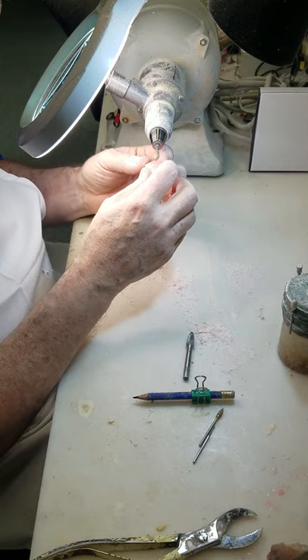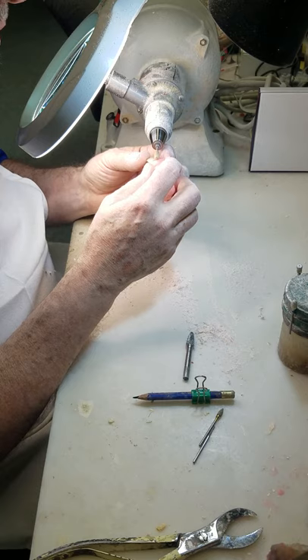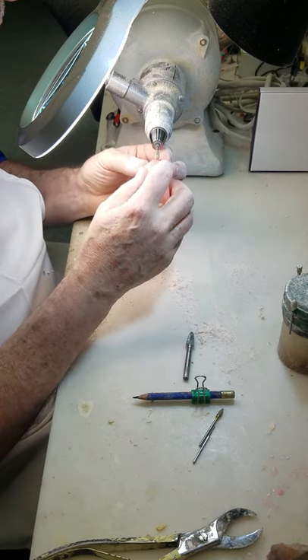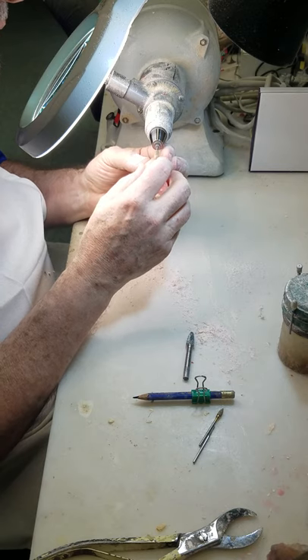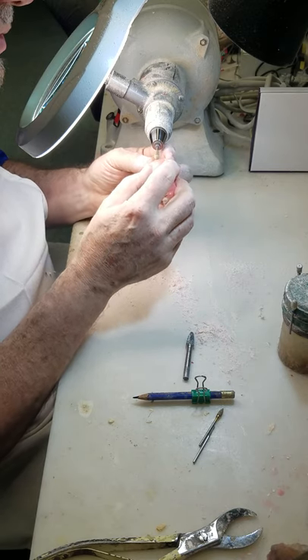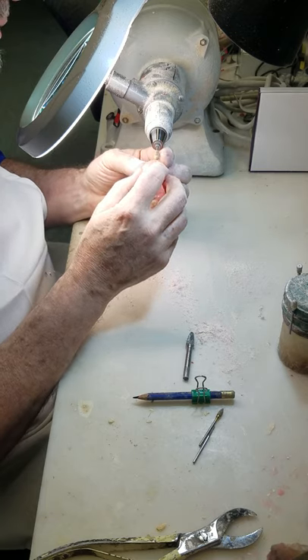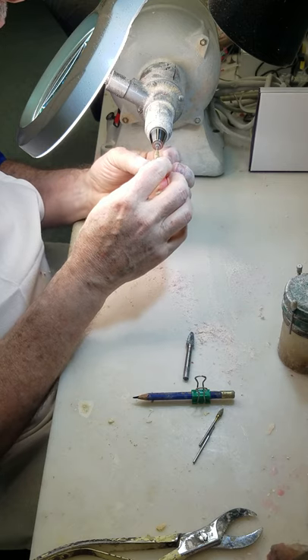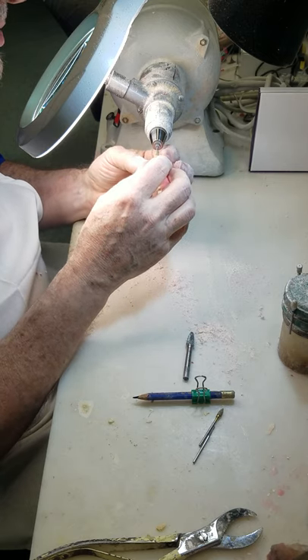With the exception of the teeth, there are very few sharp lines in the mouth. I really hate to see festooning where you have a hard line — everything should be rounded and soft.